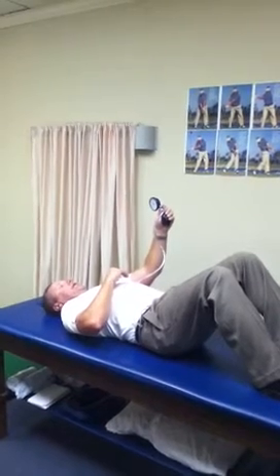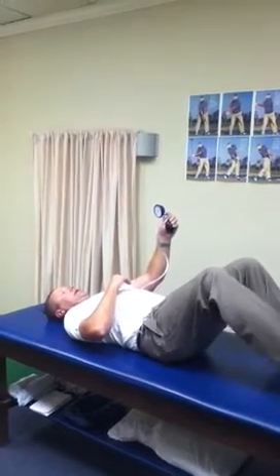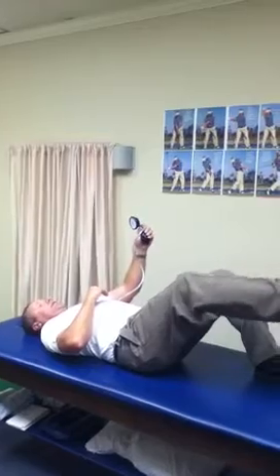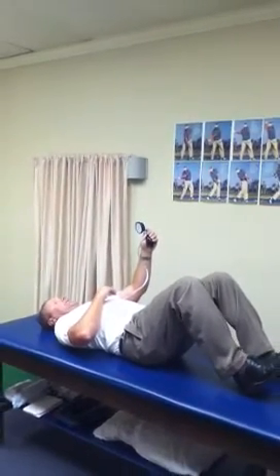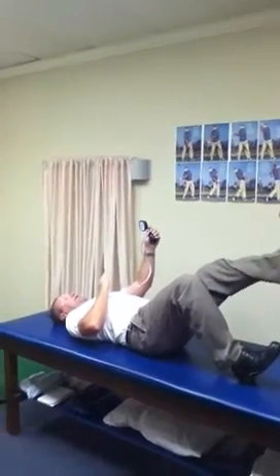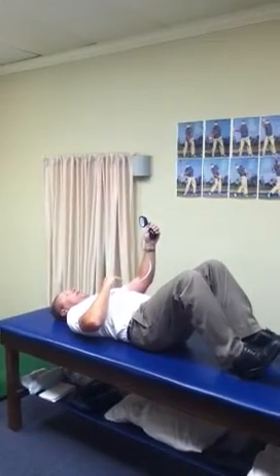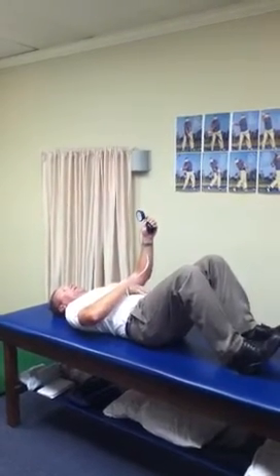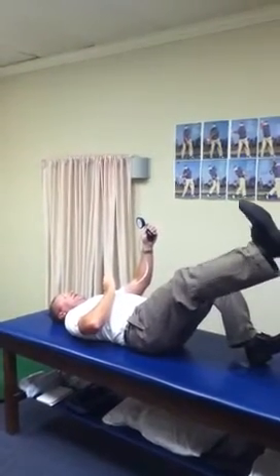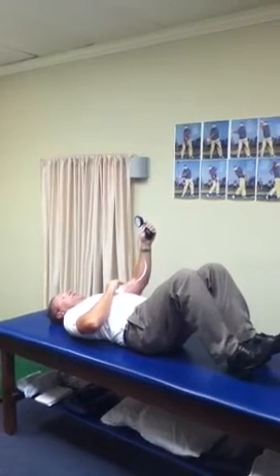From here, I've got it at 40. I can see it's at 40, and I'm going to straighten out my leg — it wants to drop, and I have to fight that tendency. I'm going to bring my leg back and then put the other side out. Right now I'm just staying slightly above 40. If the needle moves, you want it to move up, not down. But preferably, we're trying to teach neutral spine, so we want to keep the needle as steady as possible — we definitely do not want it to drop below 40.